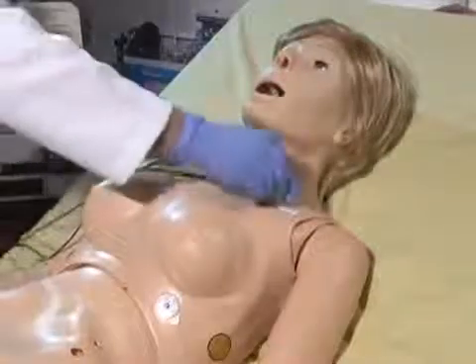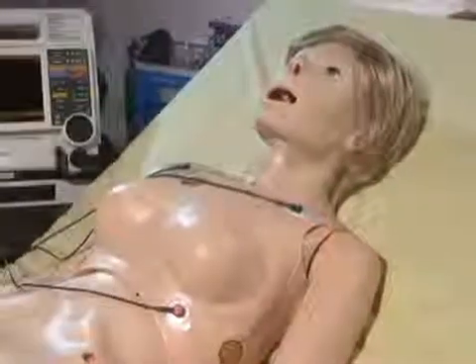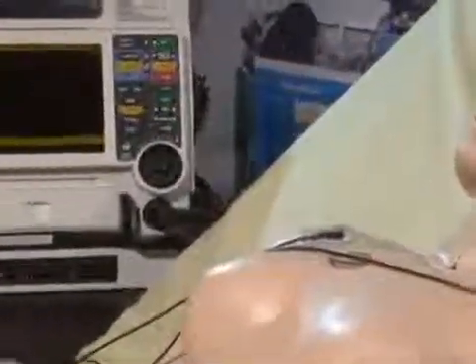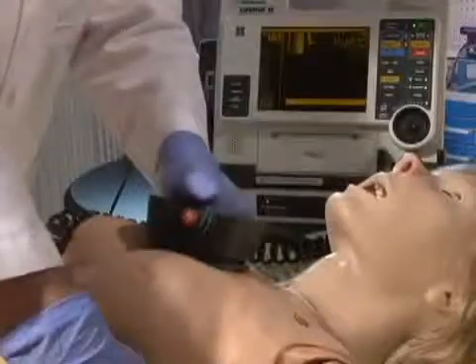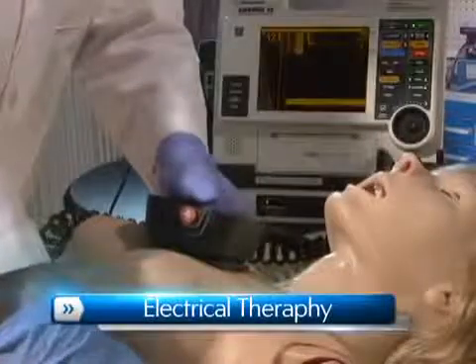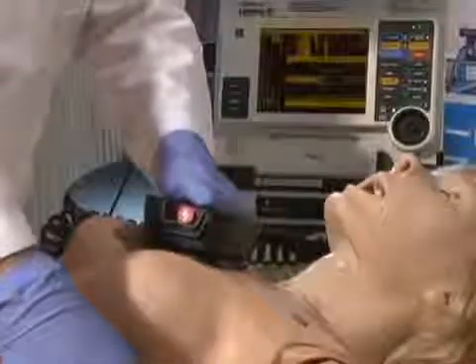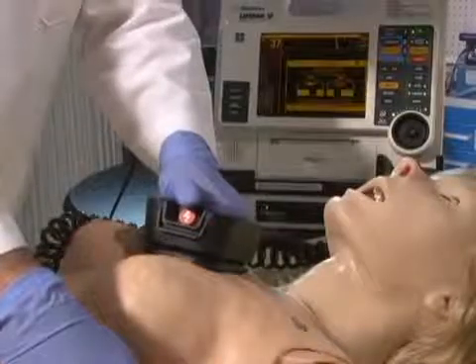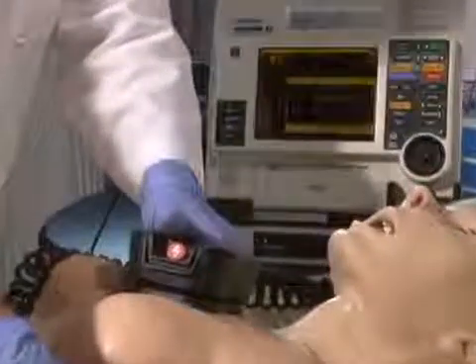Suzy's conductive skin sites allow the attachment of real electrodes and defibrillator pads. This feature permits the user to track cardiac rhythms and events with their own equipment, just like with a human patient. To add to this realism, Suzy can be shocked with real energy for cardioversion and defibrillation drills. An AED will display Suzy's ECG, analyze her cardiac rhythm, and advise action — a perfect addition to competency-based programs.